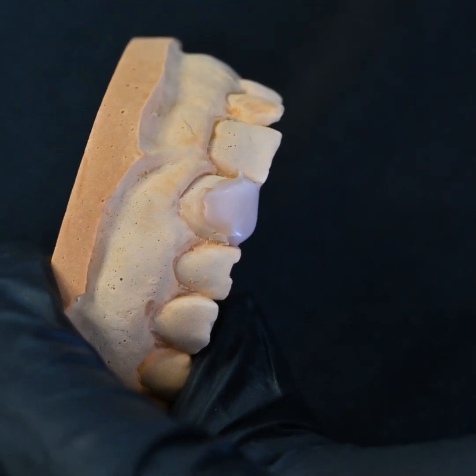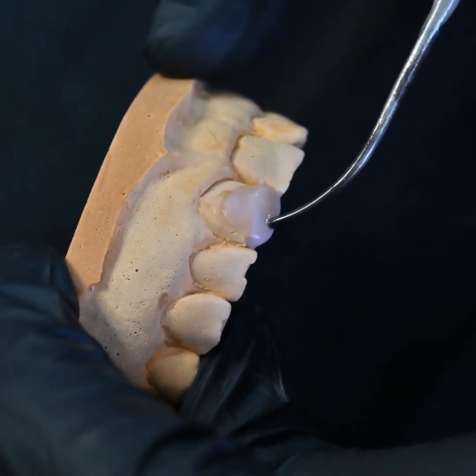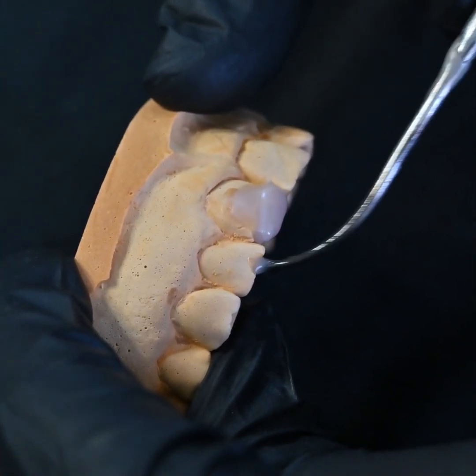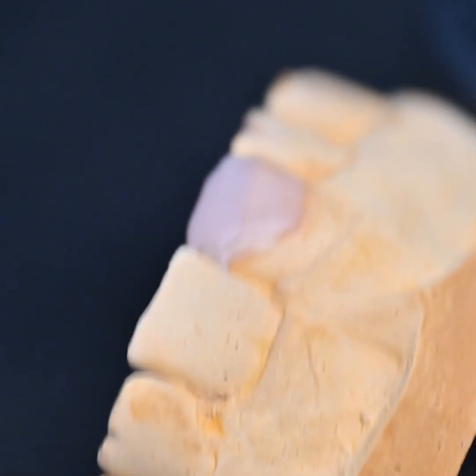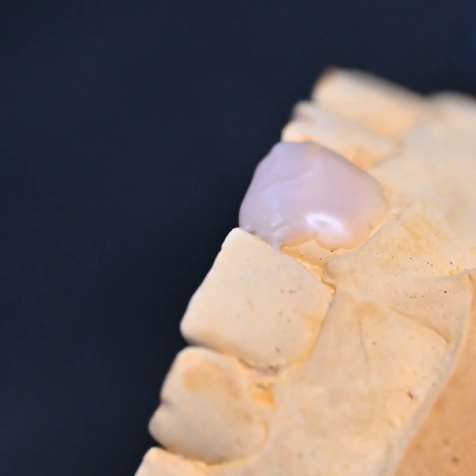I hardly need two to three minutes to finish a mock-up. Max — carving, finishing, polishing — I don't like five minutes. I started with the incisal aspect first because I wanted to get the length correct. Now I am going on to the middle and the cervical thirds.